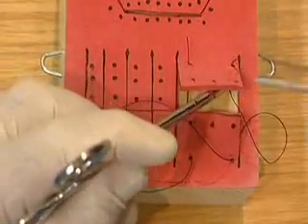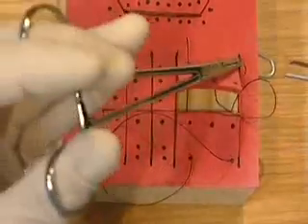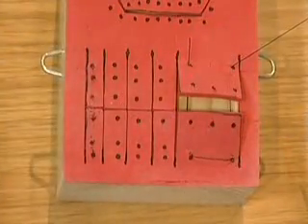Change over to the pen grip, lift the flap, and go in at a distance. Take the thread over, pick it up by the end, and wind on. Go under once, pull the knot tight. Over once, pull the knot tight, and present it to be cut.